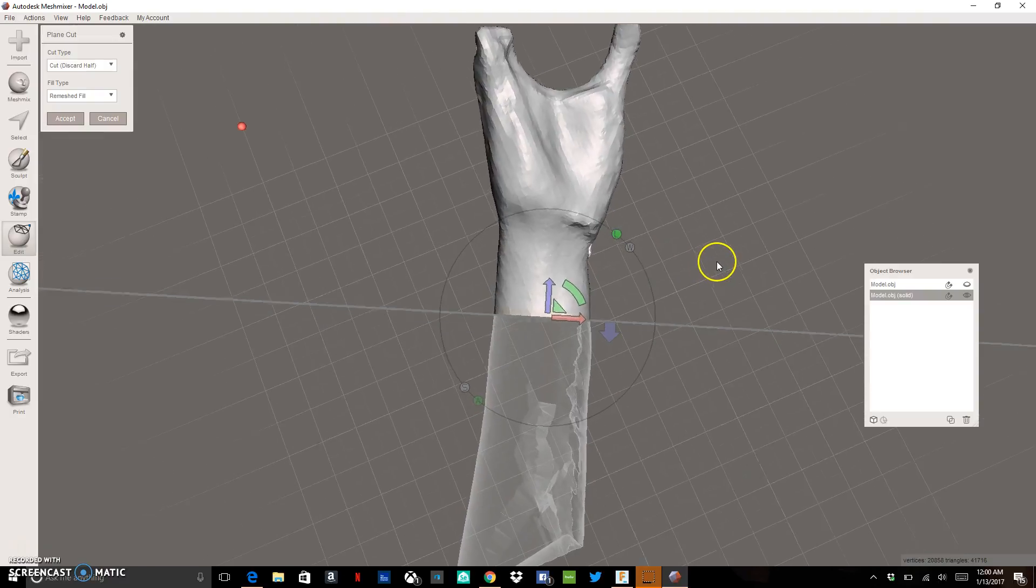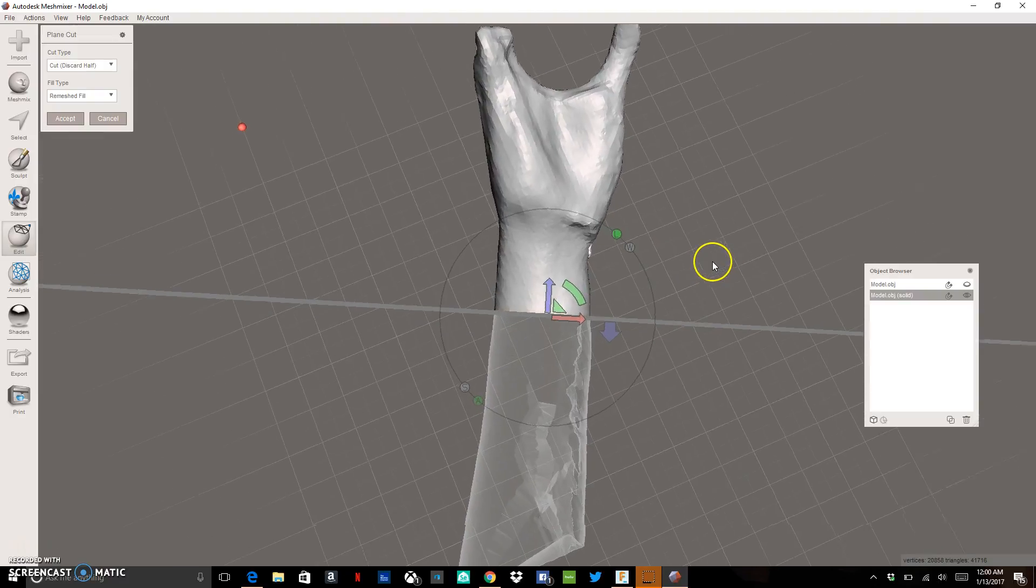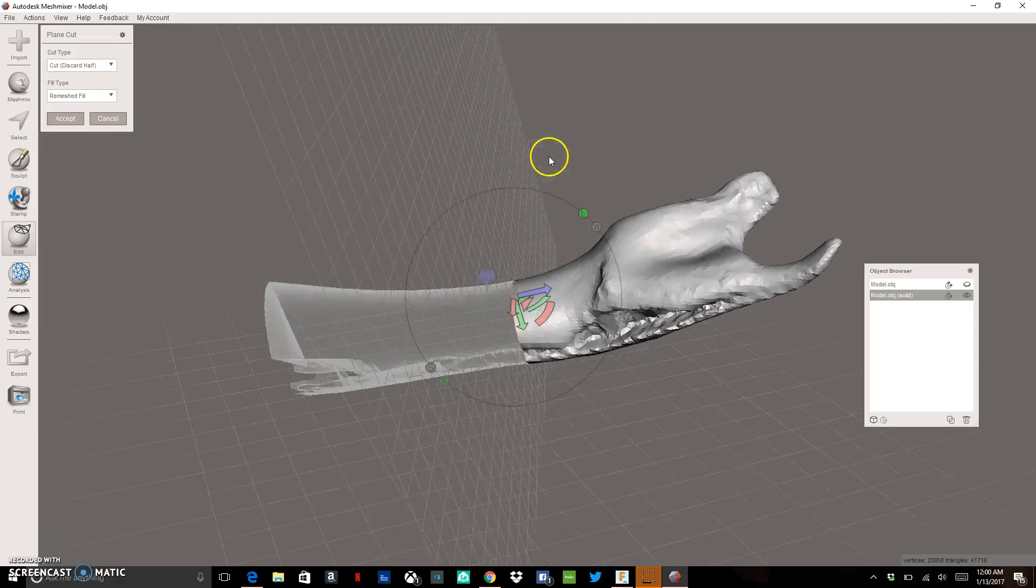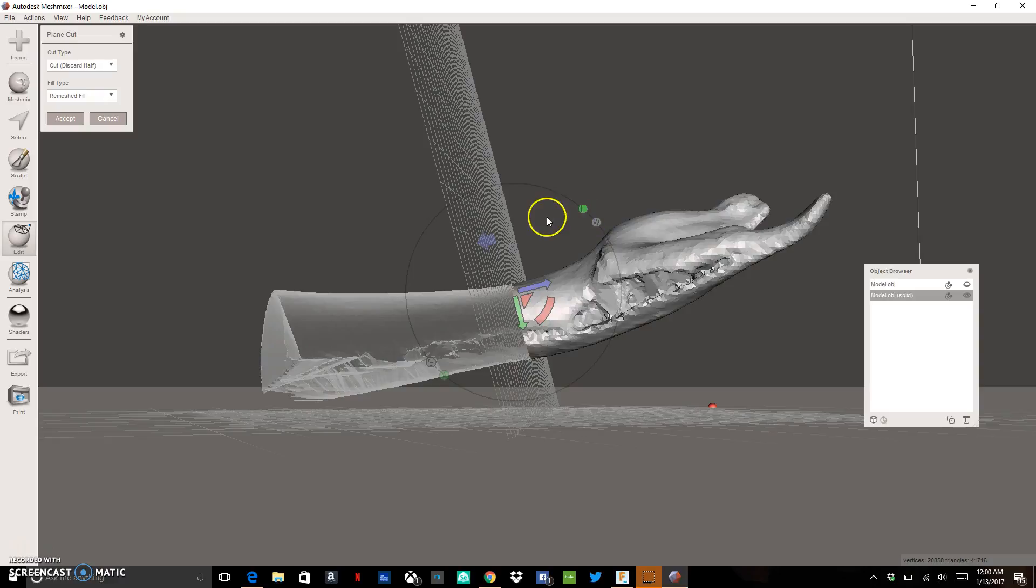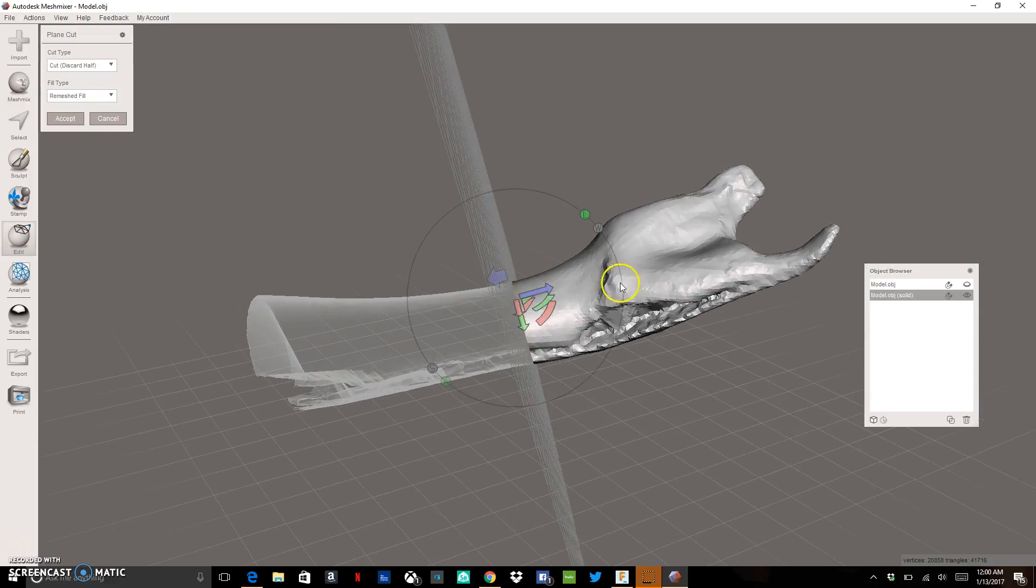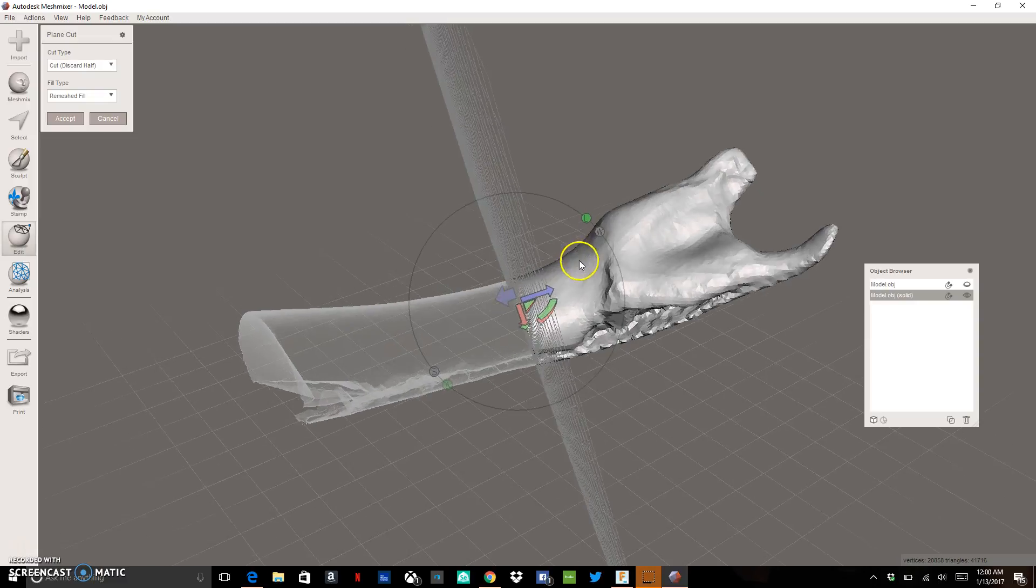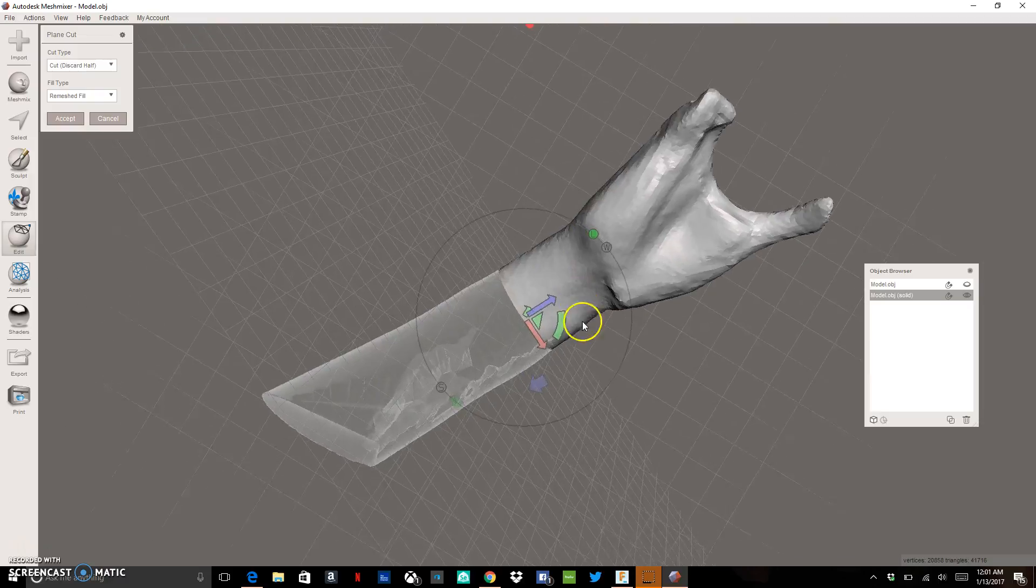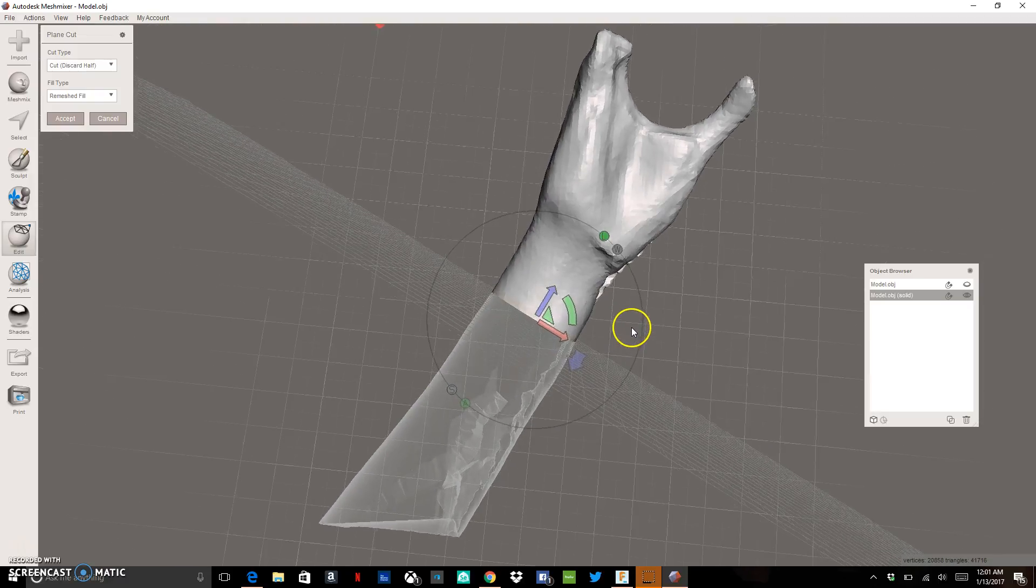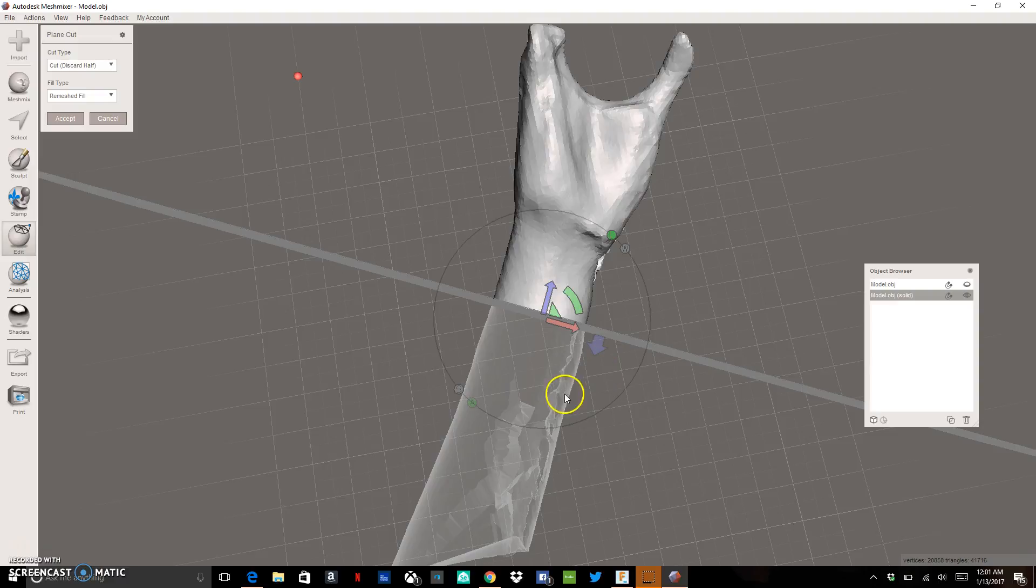If we can imagine sitting it on a table so it would sit up straight and down. This is useful to get a nice flat bottom so that if we want to print a version of this partial hand, we can use that as a model to test our designs and to fit any kind of partial prosthetic that you print as a prototype. So once that looks good and that looks pretty good to me, we're going to cut out this bottom part, this ghostly part, by just clicking accept.